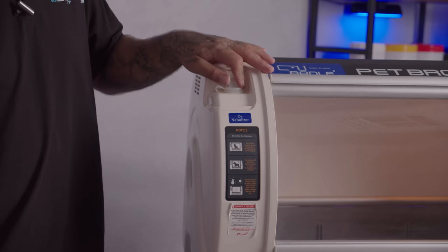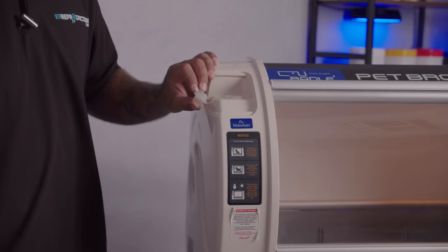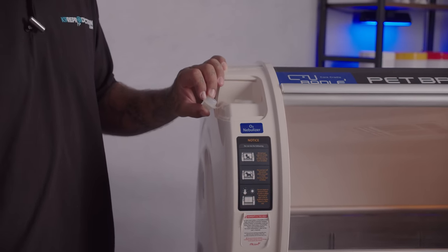Underneath this side cover you're going to find the O2 port. This doubles as a nebulizer port as well as an oxygen port to hook up your oxygen tank or your oxygen concentrator.